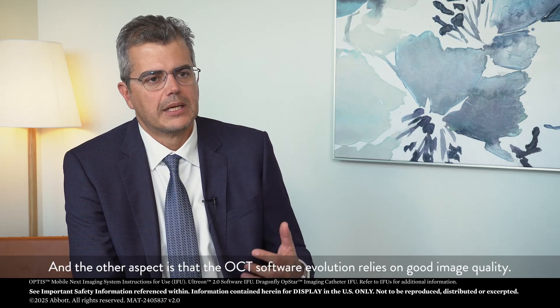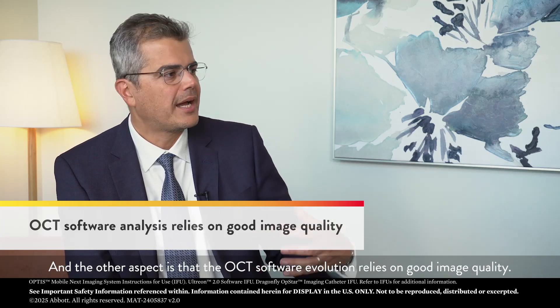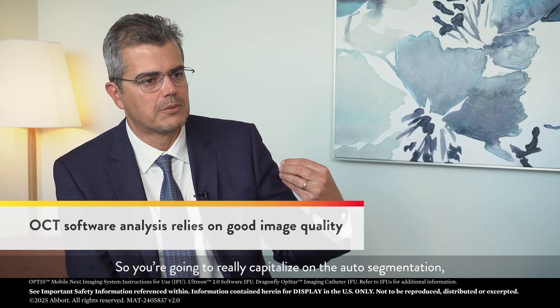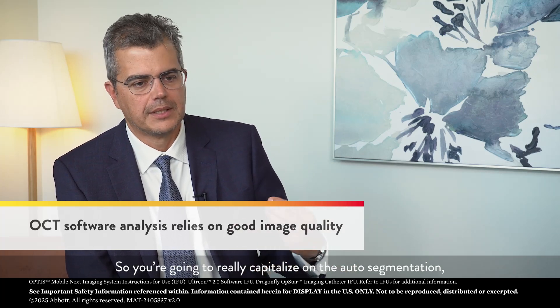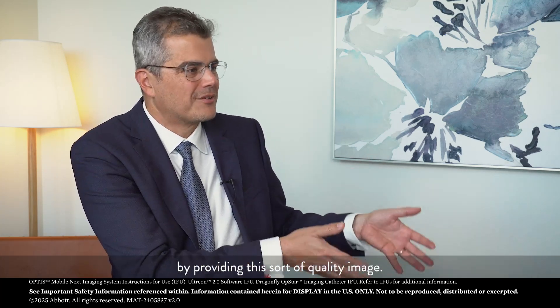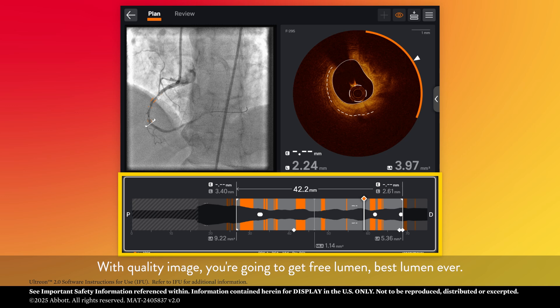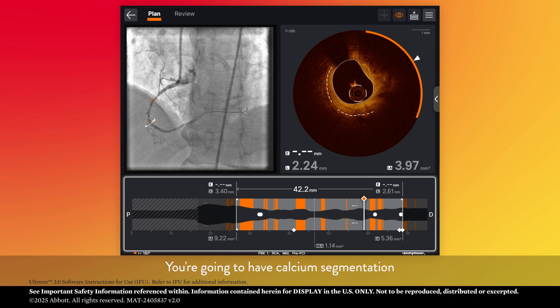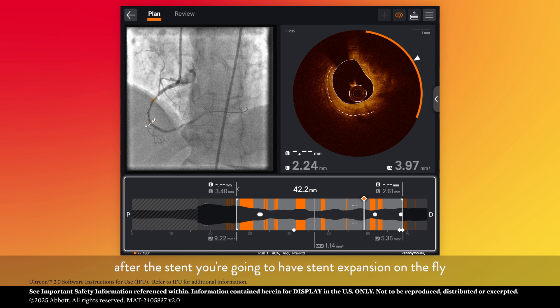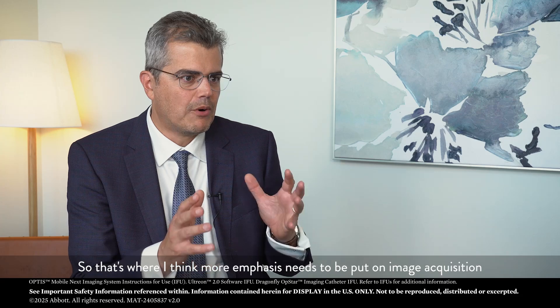The OCT software evolution relies on good image quality. You're going to really capitalize on the auto-segmentation, the so-called artificial intelligence of the software, by providing it a quality image. With a quality image, you're going to get the best lumen, calcium segmentation, stent expansion on the fly without needing to touch anything. That's where more emphasis needs to be put on image acquisition — it's the foundation for everything.